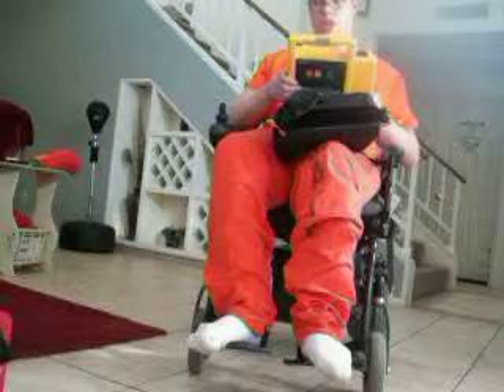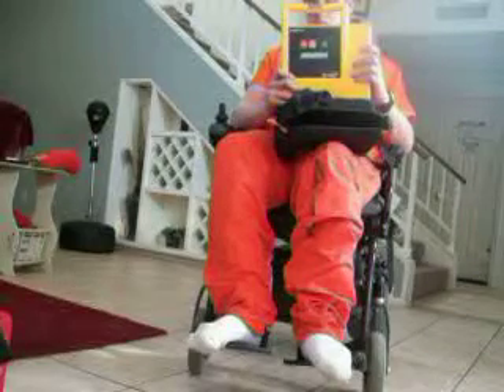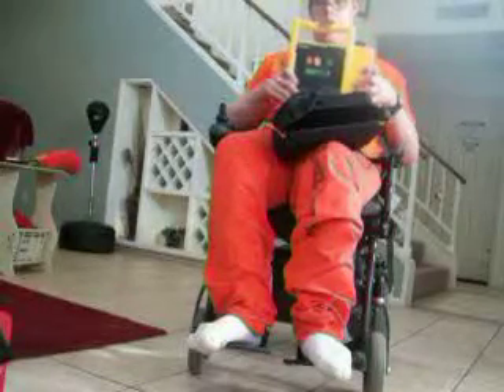This is another fine Medtronic Physio-Control product. This unit is no longer in production, unfortunately, because it is an older unit, but it is still available. It's very popular — it's everywhere. I've seen this more than the LifePak CR Plus or the 1000, and the 1000 is the newest version. So that's pretty much the LifePak 500 automated defibrillator. There's not much to it. I hope you enjoyed the video. Have a good day. If I have any more defibrillator videos, I'll let you know.